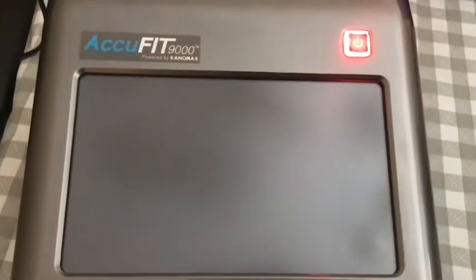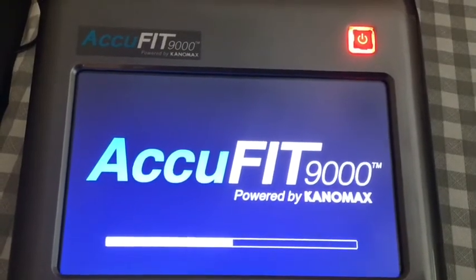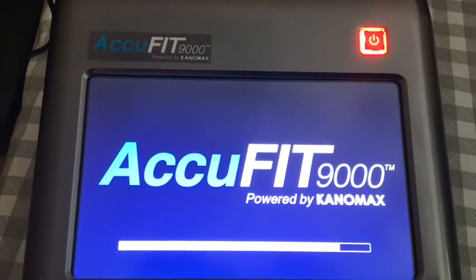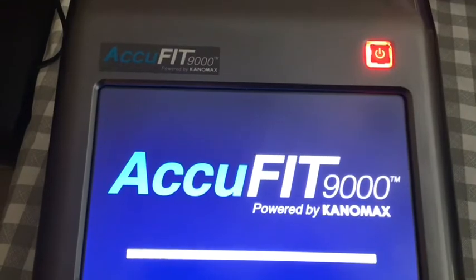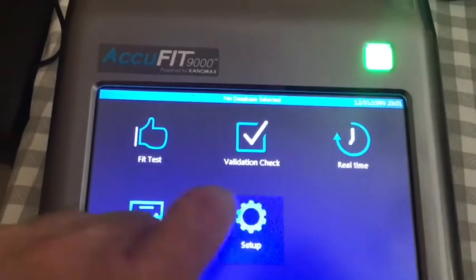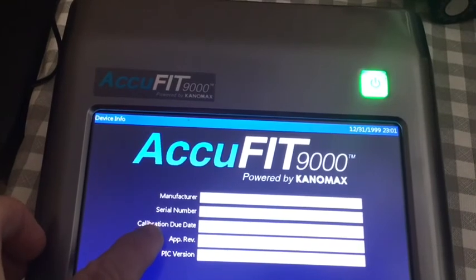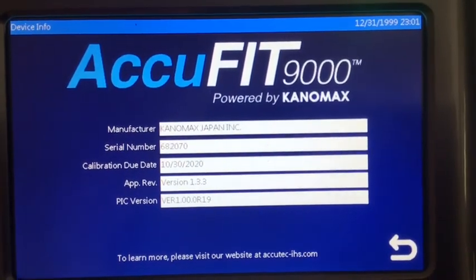When you're done, let it boot up and I'll show you. I'm sure it worked, but there's a way to confirm that. I went under Setup and Device Info, and now I can see the version number is 1.3.3. It's definitely updated.